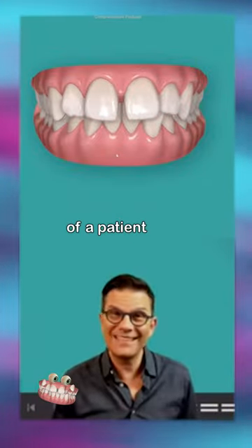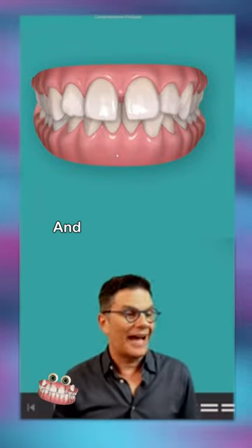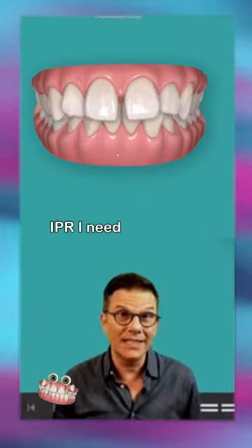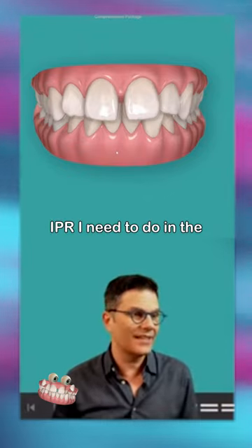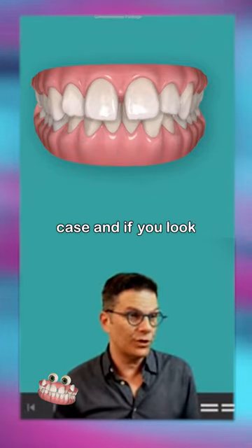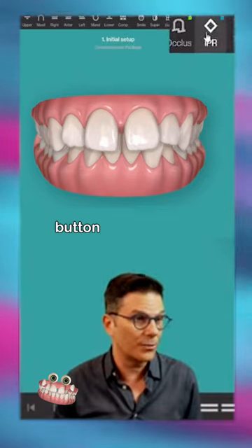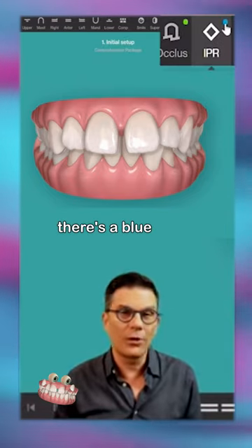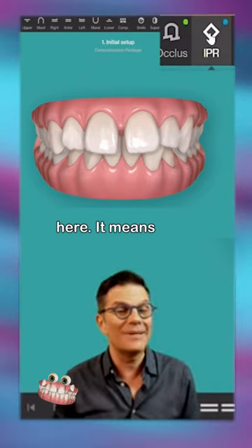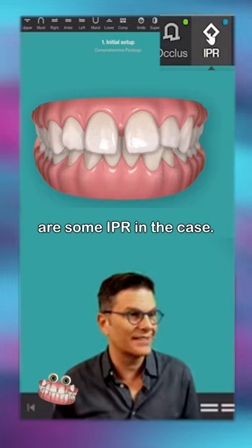I have the clinic of a patient here and I want to see the IPR I need to do in the case. If you look at the IPR tool button here, you see there's a blue circle. It means there's some IPR in the case.